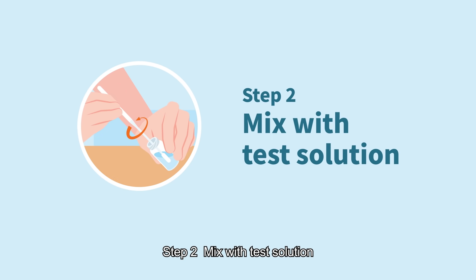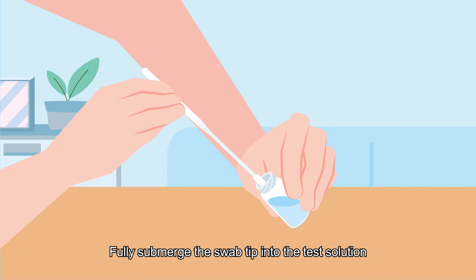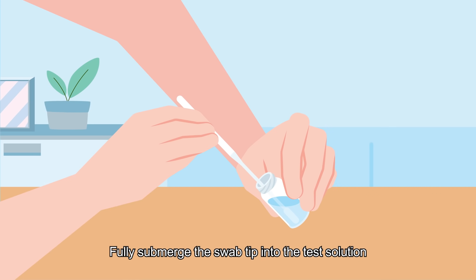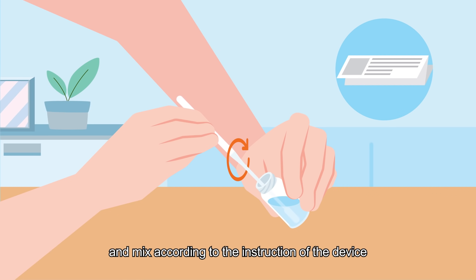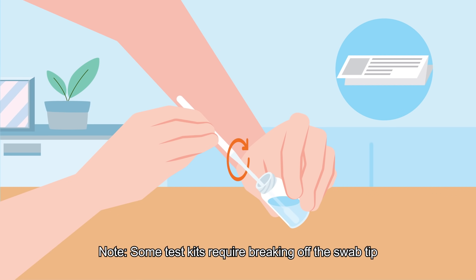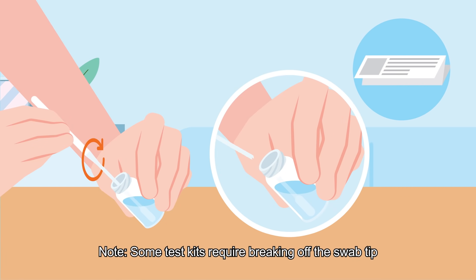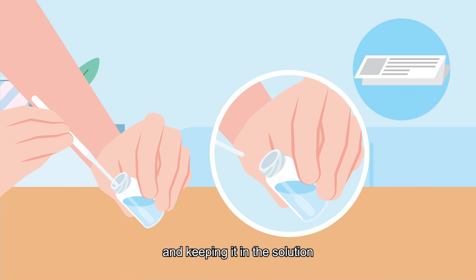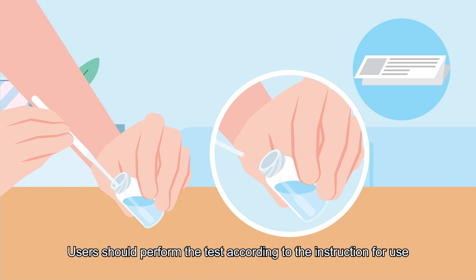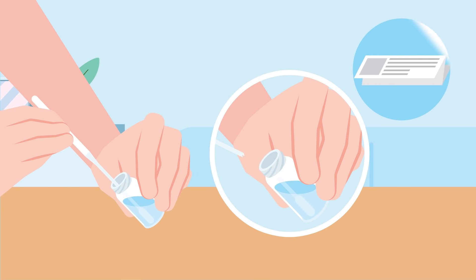Step 2: Mix with Test Solution. Fully submerge the swab tip into the test solution and mix according to the instruction of the device. Note: some test kits require breaking off the swab tip and keeping it in the solution. Users should perform the test according to the instruction for use.